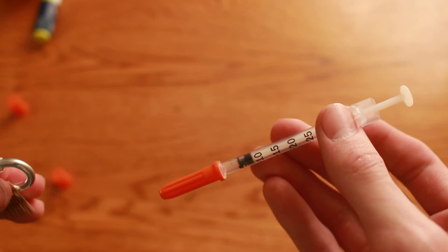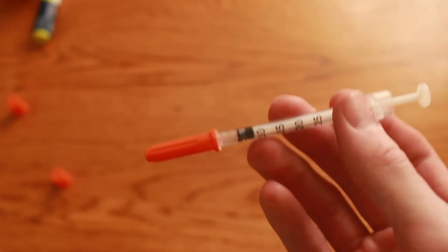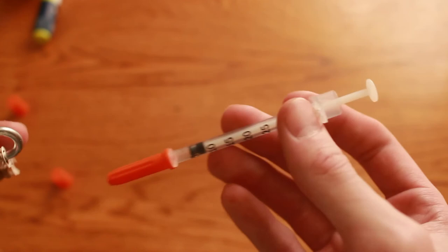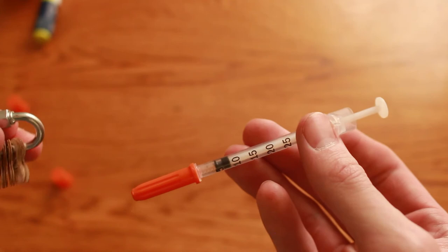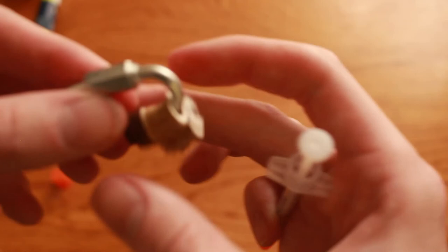You can just reuse the syringe a few times and once it's down at zero you can throw it out and get a new syringe. This can save a ton on the amount of syringes you use. Instead of using one syringe per correction you can use maybe one syringe for every five or ten corrections, especially if you're like me and you often only need a little bit like a half unit or one unit or even a quarter unit.